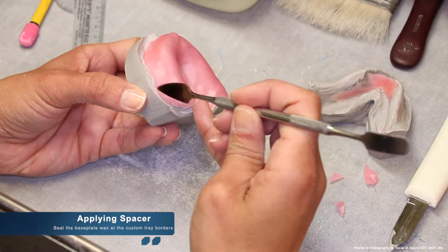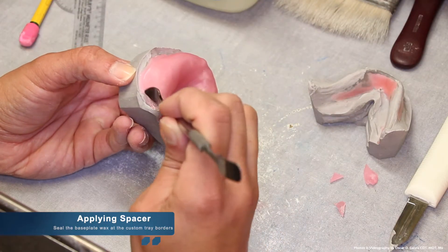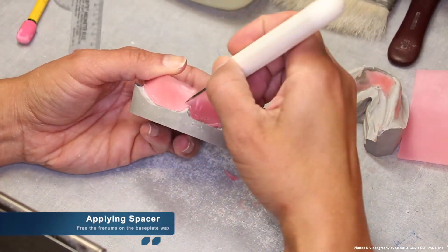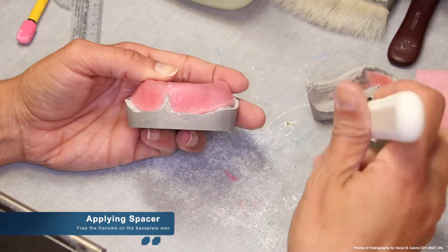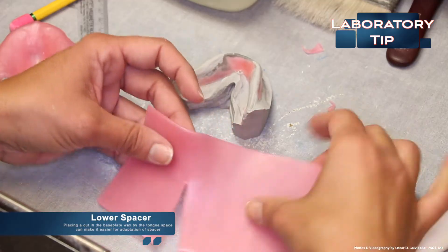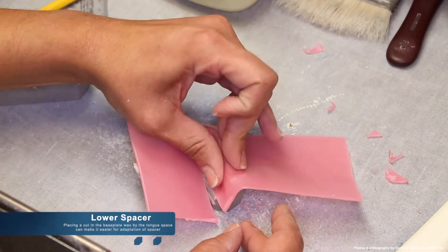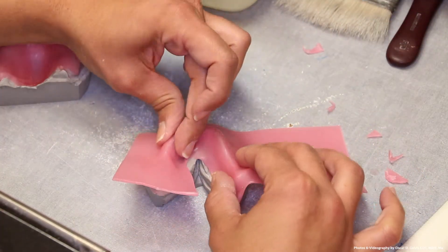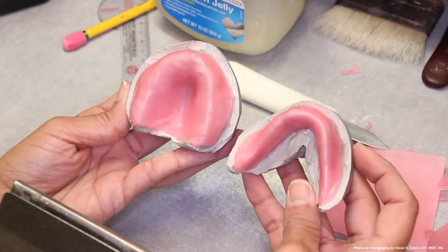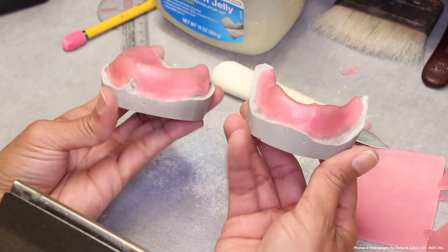Once you have applied the spacer properly, seal the borders of the base plate wax to the cast. Be sure to expose any freenums that may be covered by the base plate wax spacer. When it comes to applying spacer on the mandibular cast, placing a cut into the base plate wax by the tongue space can make it easier for adaptation of the spacer without tearing the wax. The results from a correct application of spacer for a custom tray should appear as shown.